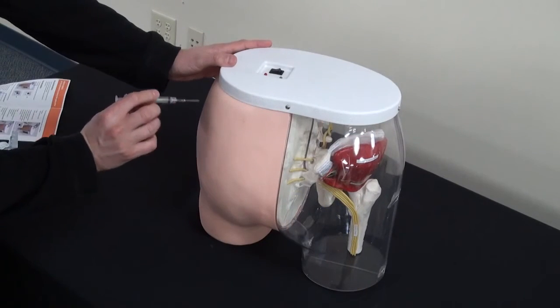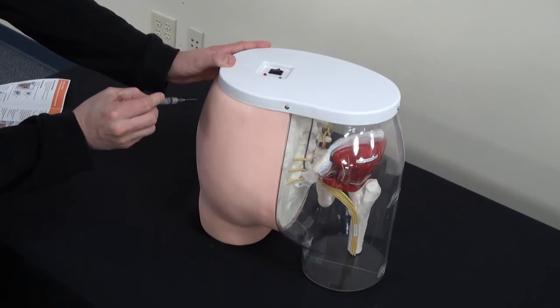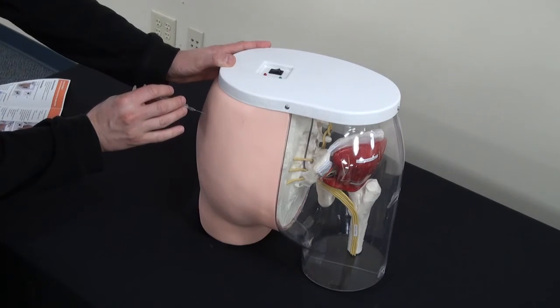Take the needle, remove the cap. Remember, no liquid. Insert the needle straight in.